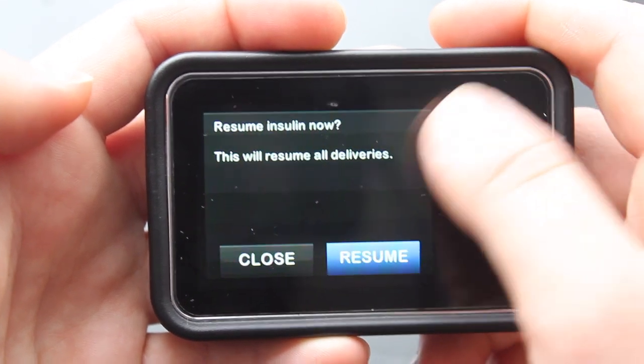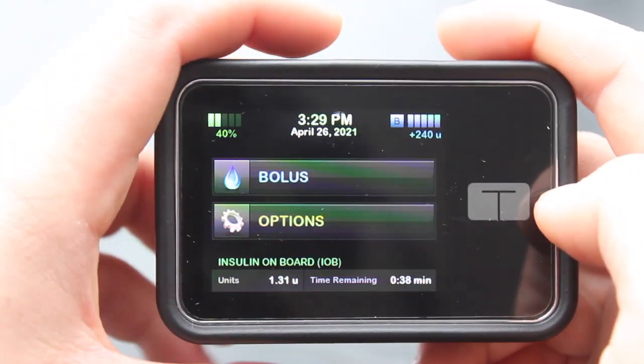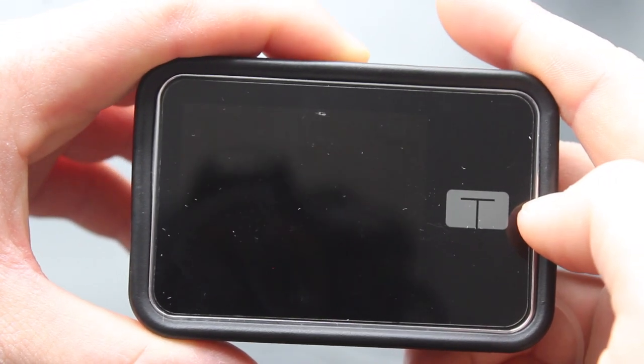The last thing to do is hit resume and you are good. You have a full cartridge, full tubing, and a new insulin site.